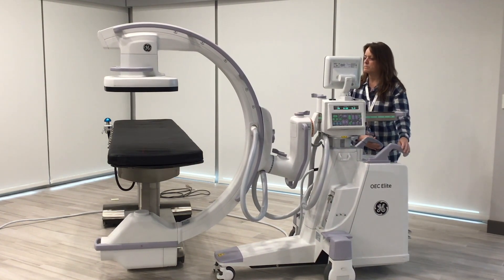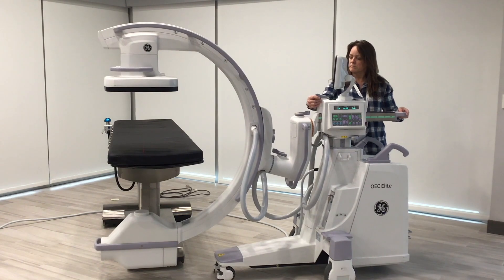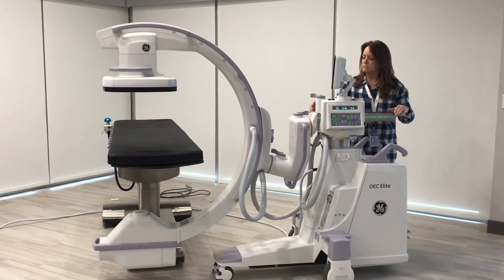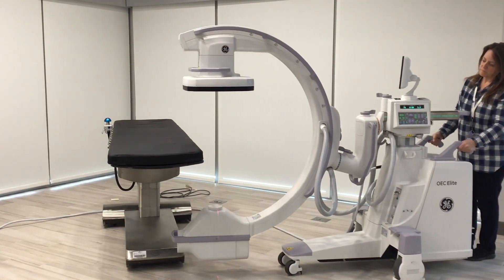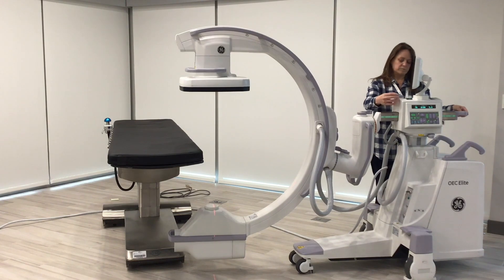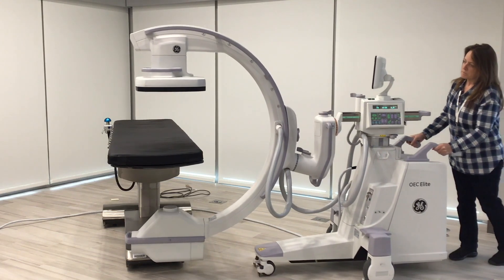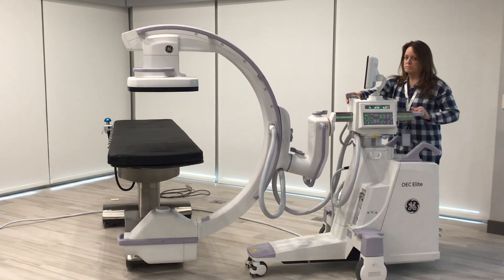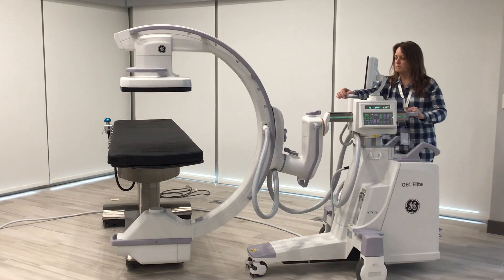Here's where some of the locks come into play. Notice you have your green in and out brake. If you needed to move the C-arm back towards you, toward the patient's side, you have no movement of the arm if you needed to come back in — you have to fight the whole weight of the system. A tip we really like to give out to our techs is: take the green brake and advance it to 10 centimeters. This allows you, when you push the C-arm in to position, 10 centimeters of movement in or back without having to move the whole system. Really helpful to do that before you push the C-arm in — it saves you having to fight the whole weight of the system.